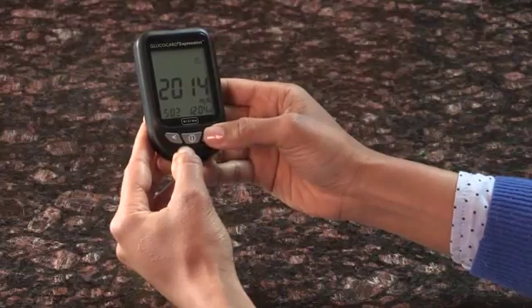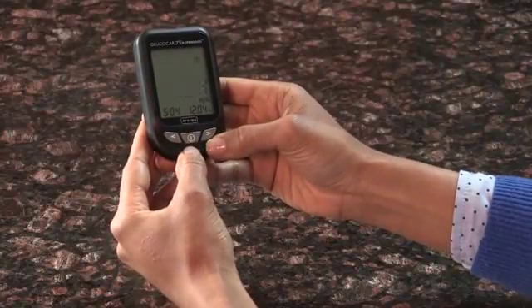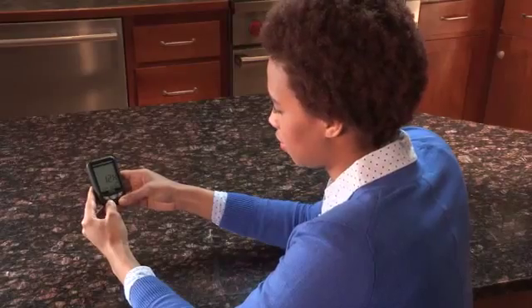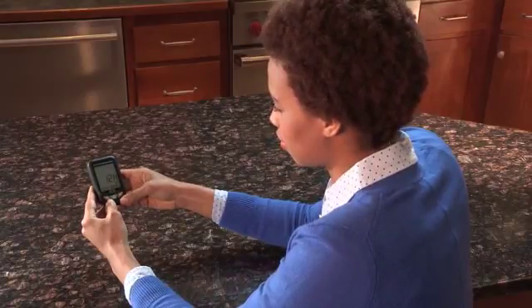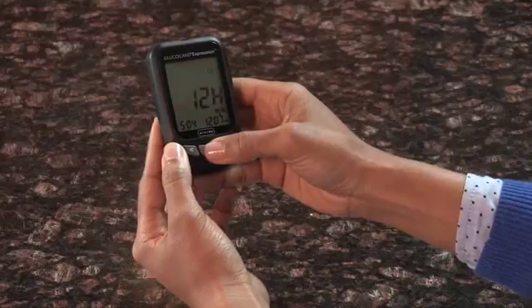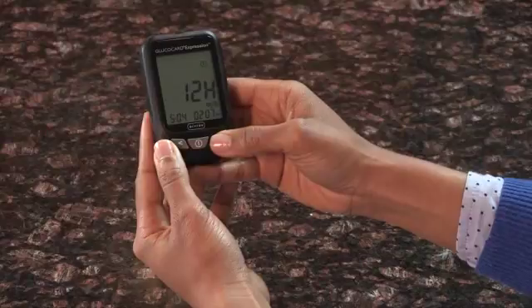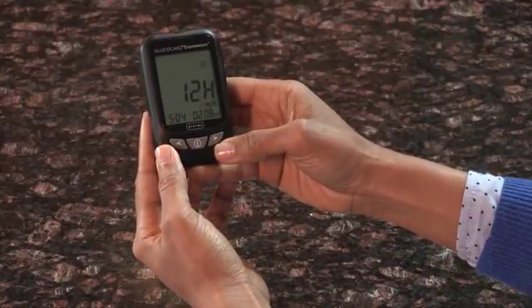Press the left or right arrow until the correct day is displayed. Press Enter to confirm your choice and the screen will advance to the Time Format setting. The current time format will flash. Press the left or right arrow to select either 12-hour format or 24-hour format. Press Enter to confirm your choice and the screen will advance to the hour setting. Press the left or right arrow until the correct hour is displayed. Press Enter to confirm your choice and the screen will advance to set the minutes.